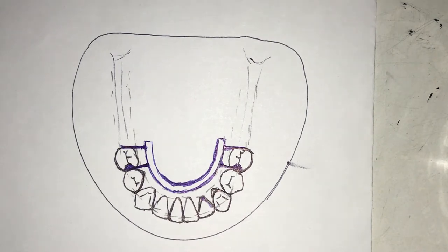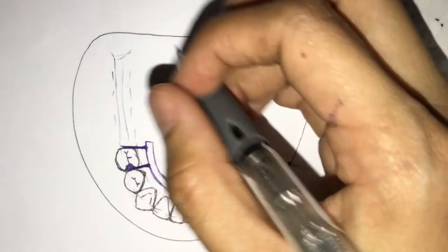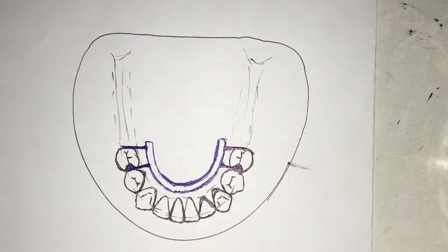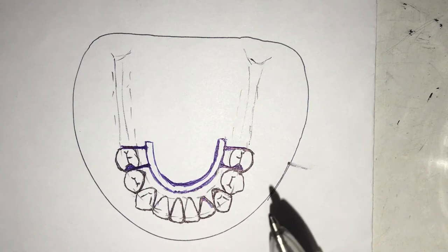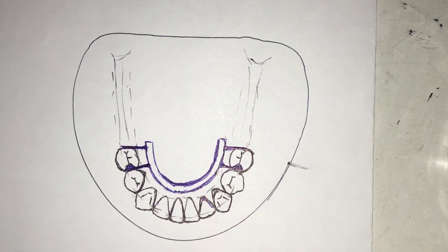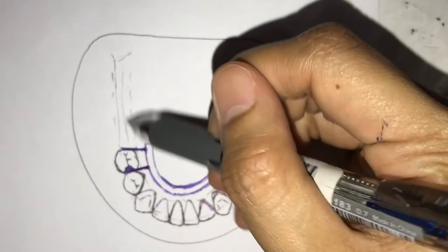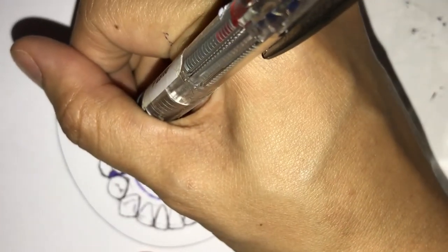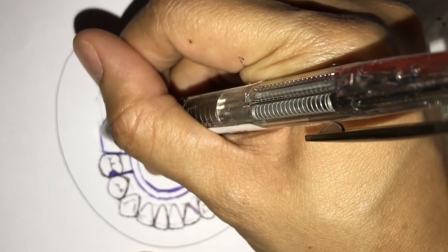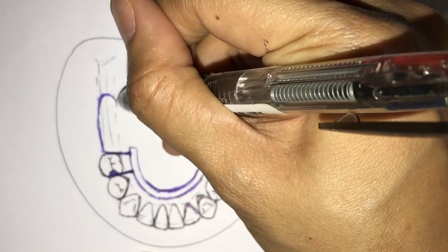Next, the missing minor connector is the grid work. For a distal extension case, the grid work in the mandible terminates two-thirds of the way — not all the way. We divide the edentulous span into three and end at two-thirds, placing the grid work as carefully as possible.